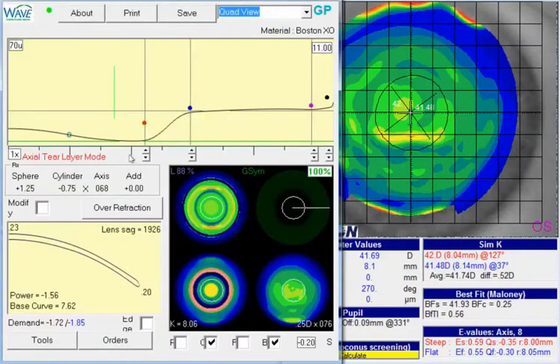So if we bring the lens up, I think the demand on this one is far a little bit low. In fact, WAV doesn't even recognize this as an ortho-K lens. It's coming through as a conventional daytime gas permeable lens.